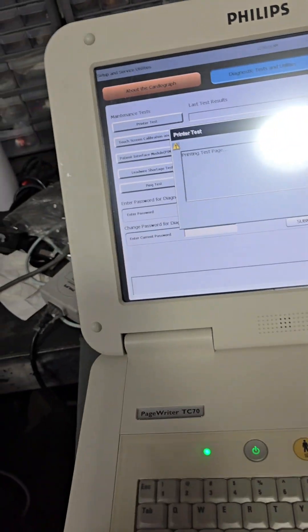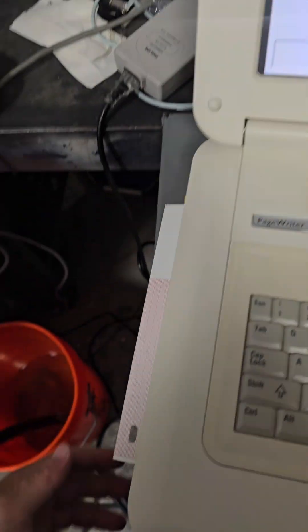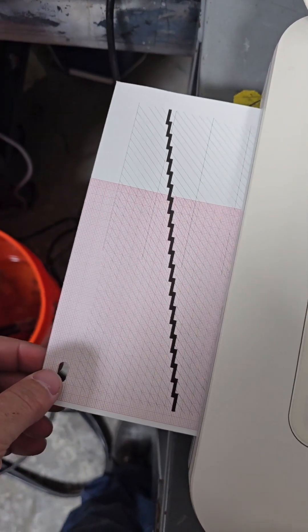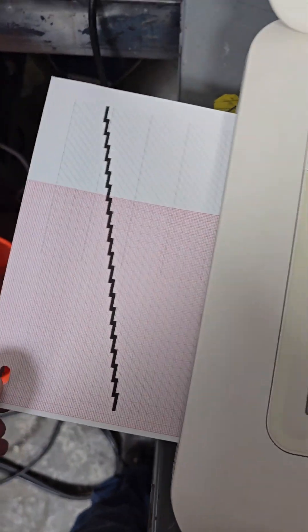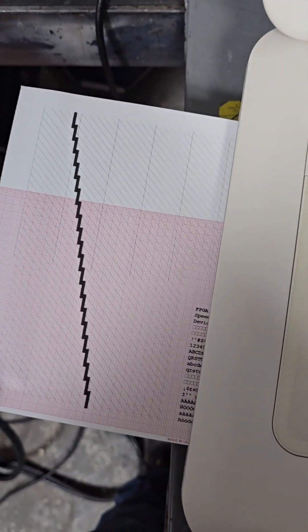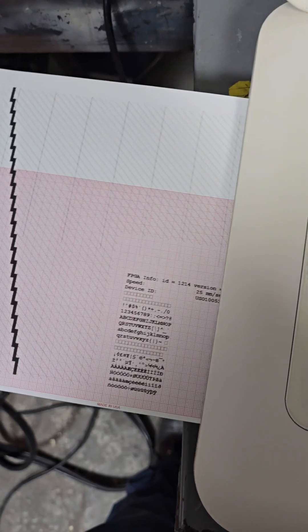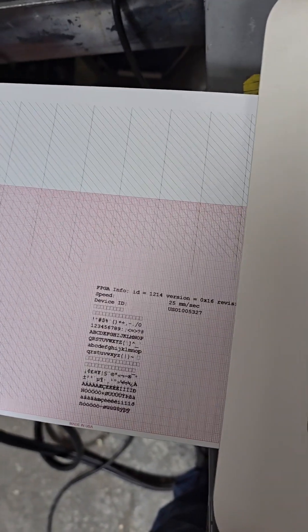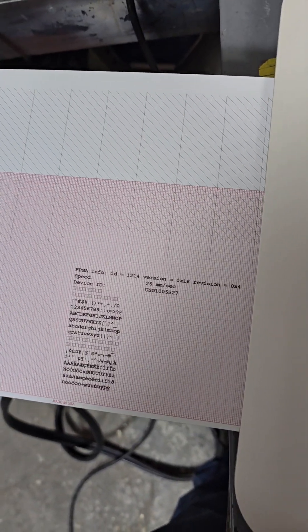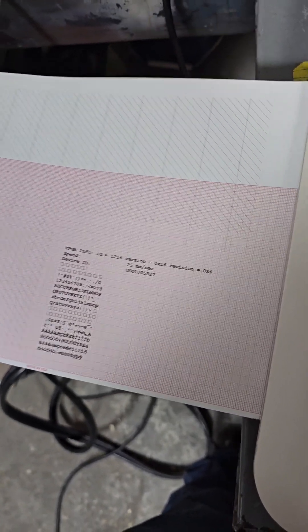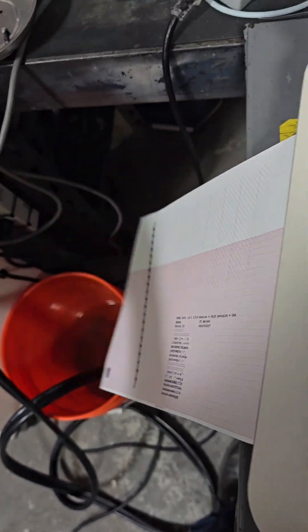Super easy. And here's your printer tests. All this thing is printing late. Oh, looks okay to me.